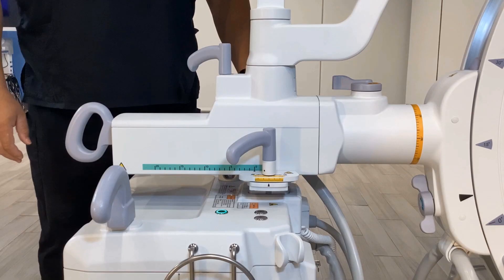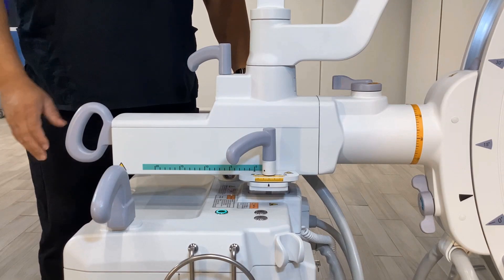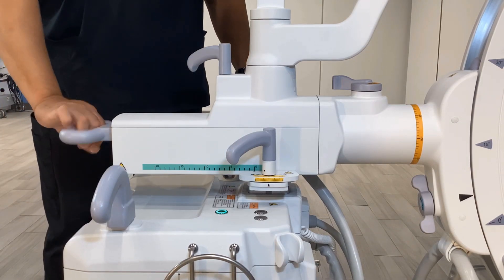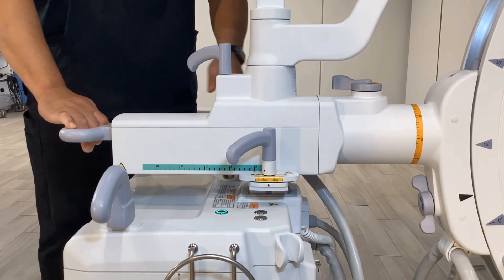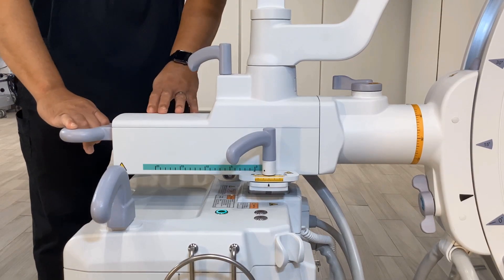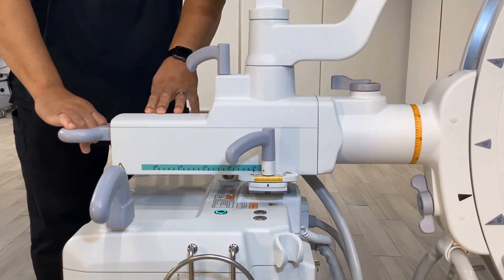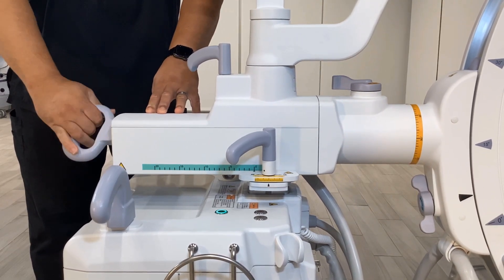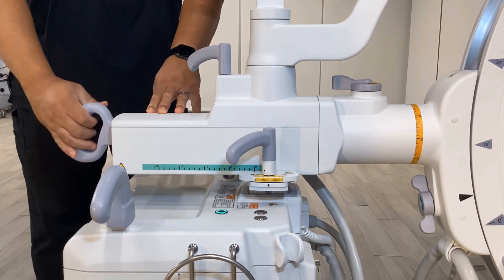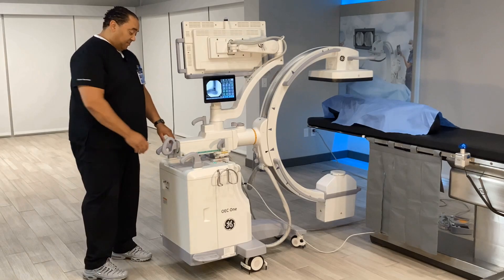Horizontal cross arm. Release the cross arm brake by placing the brake handle in the position identified by the unlock label. Push or pull the cross arm to the desired position. Lock the cross arm brake by placing the brake handle in the position identified by the lock label.